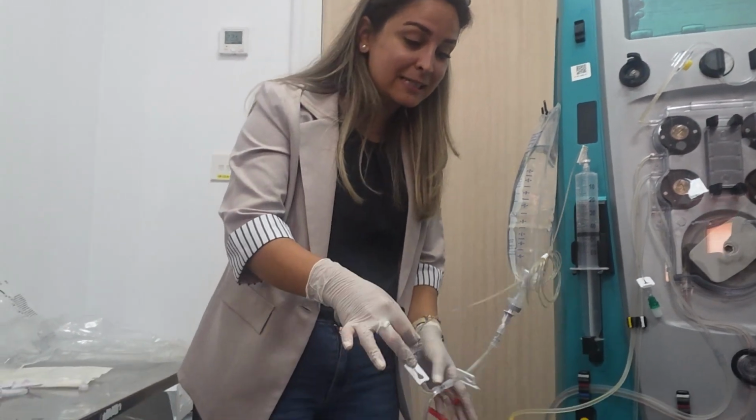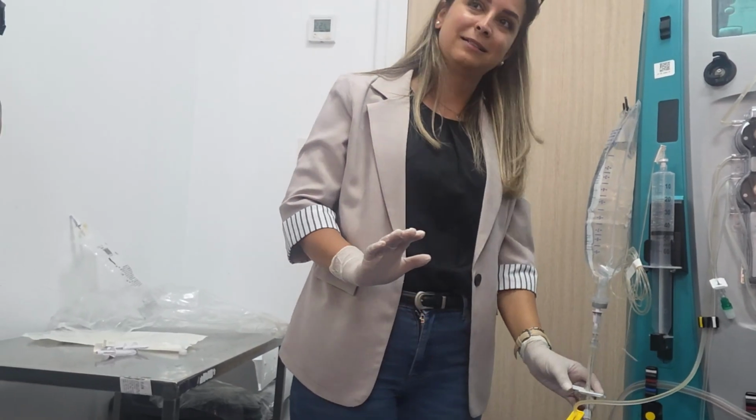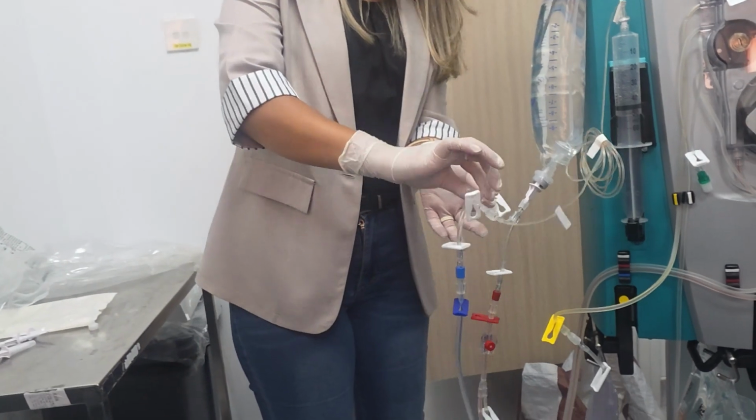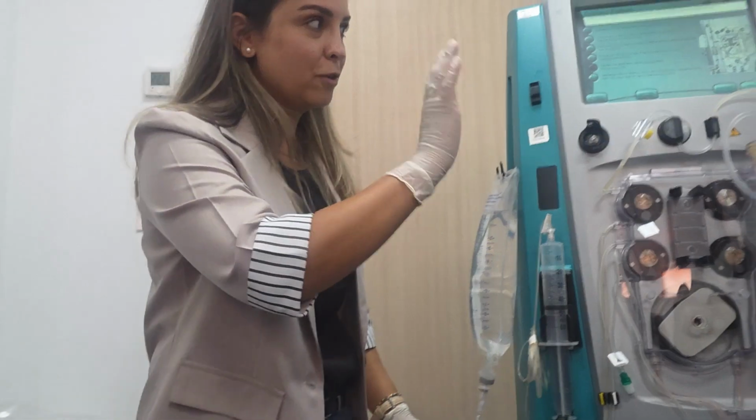I'm getting it. When you swap, be careful that you are still putting the calcium back. Yes. You swap the whole set. Take it from here and swap it. Yes. All good. So then you are agreed.